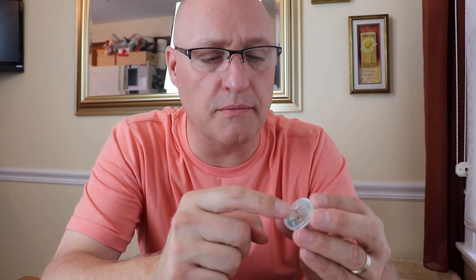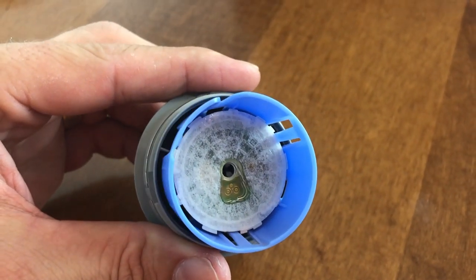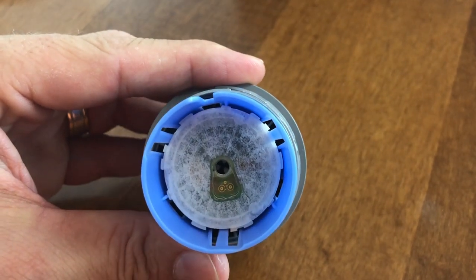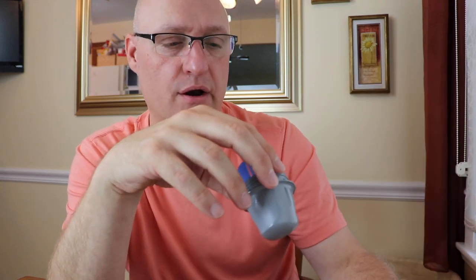Because the filament is flexible, you literally don't even feel it, and there's a very low profile. The applicator comes completely sealed — you break the seal like so. In here is the applicator. If you notice, there's a hole in the center. What happens is the actual needle and the filament part is actually in here, sealed to be completely sanitary. This actually holds the glue and that last computer component as well as the filament.